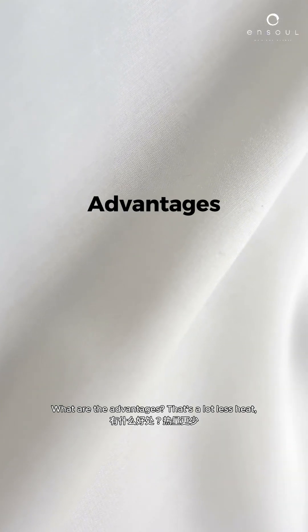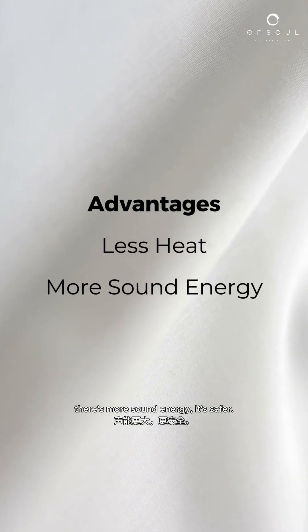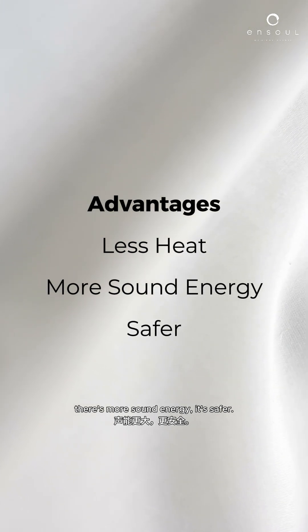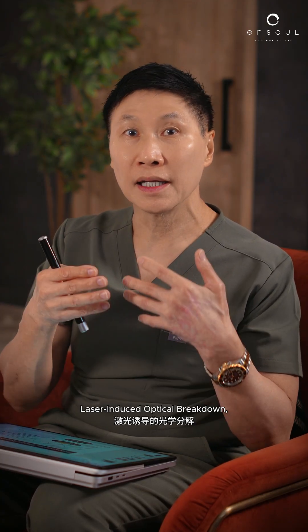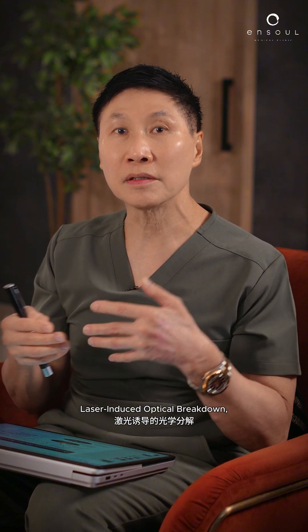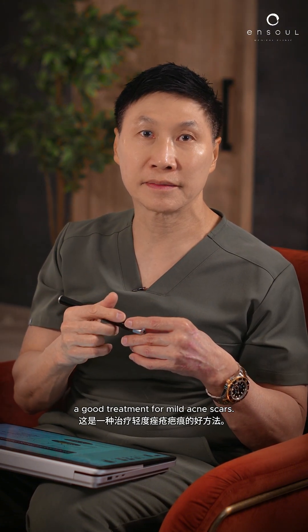One of the advantages is there's a lot less heat, there's more sound energy, and it's safer. It also has a phenomenon called LIOB — laser induced optical breakdown — a good treatment for mild acne scars.